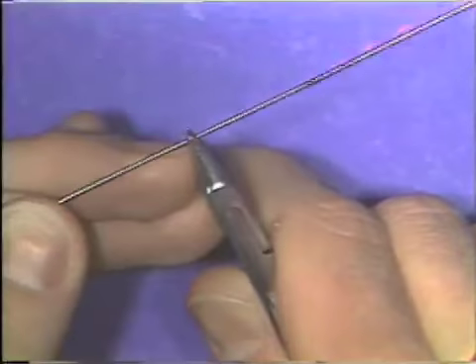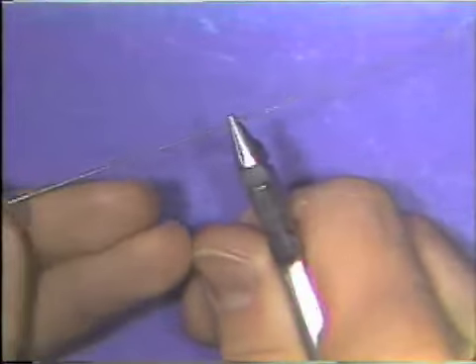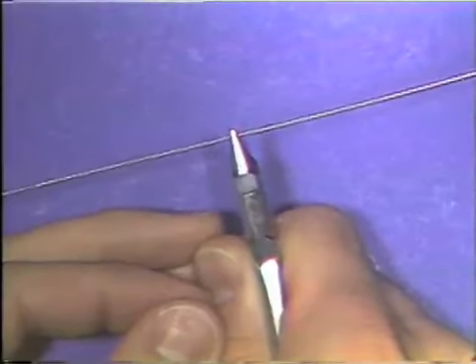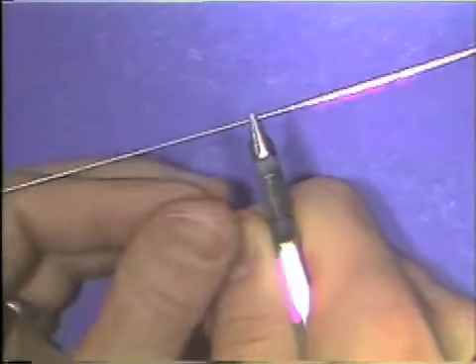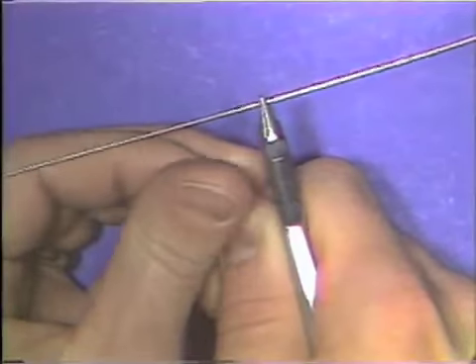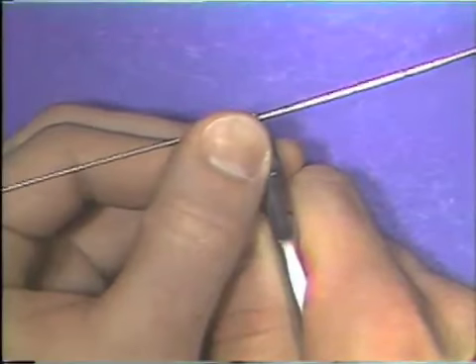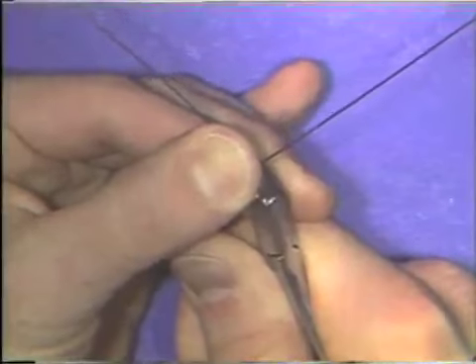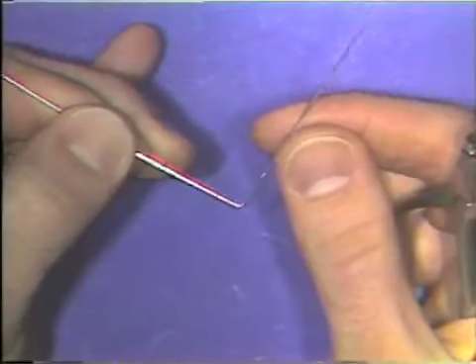You also must be sure that the wire is at 90 degrees to the long axis of the beaks of the plier. Now, in wire bending, the pliers serve as a vise to hold the wire. The actual bending is done with the thumb and fingers of the opposite hand. Now, to make a bend, the thumb is placed as close to the beaks of the plier as possible, and the wire is pushed over the round beak of the plier. The result is a right angle bend.